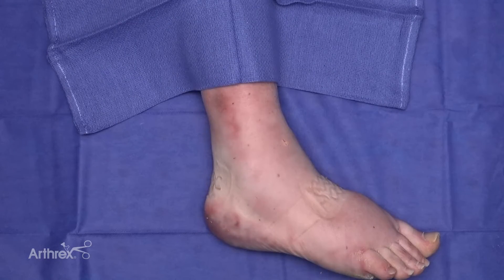In conclusion, the Nano Needle and the Nano Sabre allow for increased versatility and control with increased ergonomics to maneuver through small joints of the foot and ankle, allowing more precise control and maneuverability in foot and ankle cases.